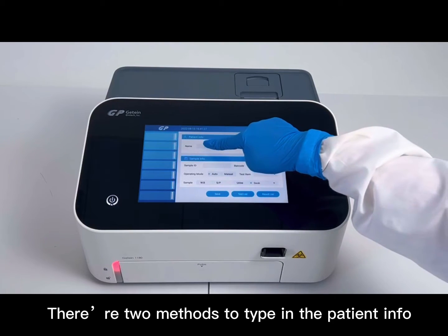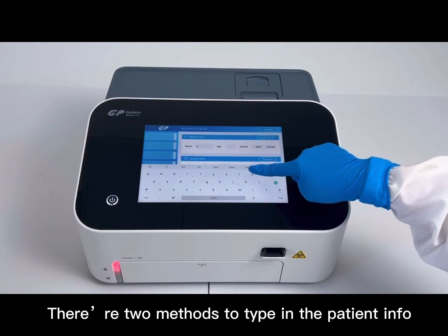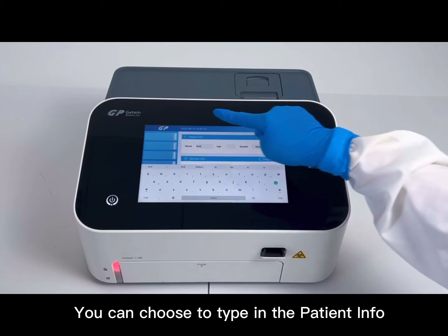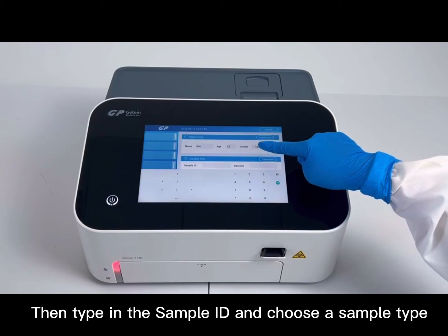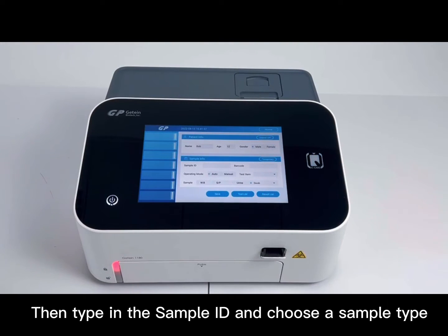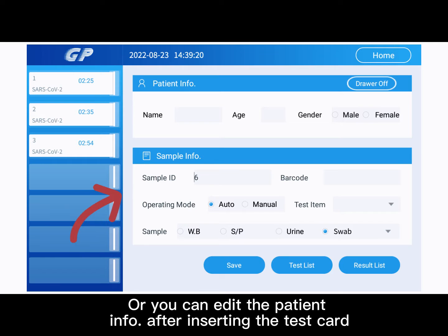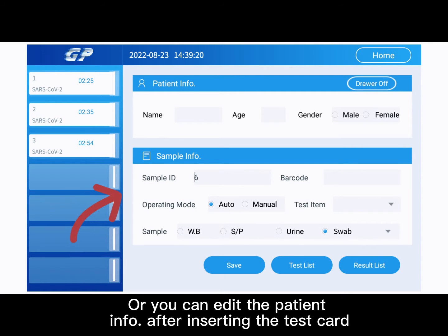There are two methods to enter the patient info. You can choose to type in the patient info before inserting the test card — type in the sample ID and choose the sample type. Or, you can edit the patient info after inserting the test card.